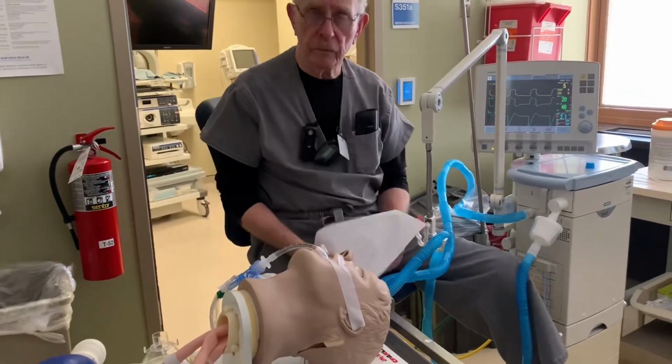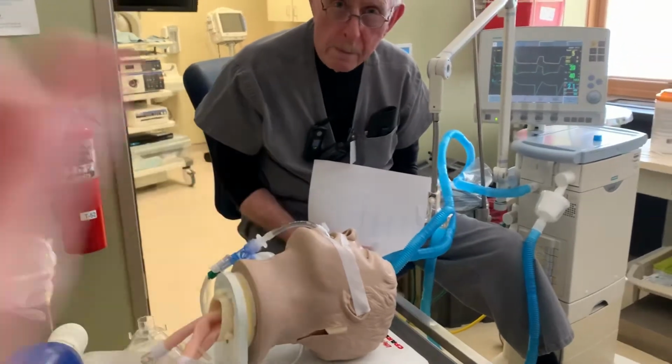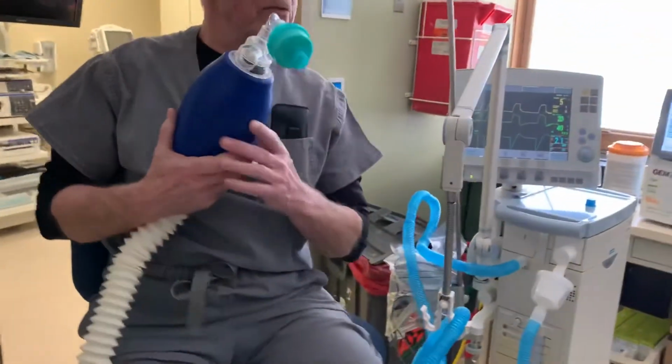Last, can we show them how to connect the bag to the ET tube? Okay. In case they've never done that before. Hold on a moment, student, and we will get to you.